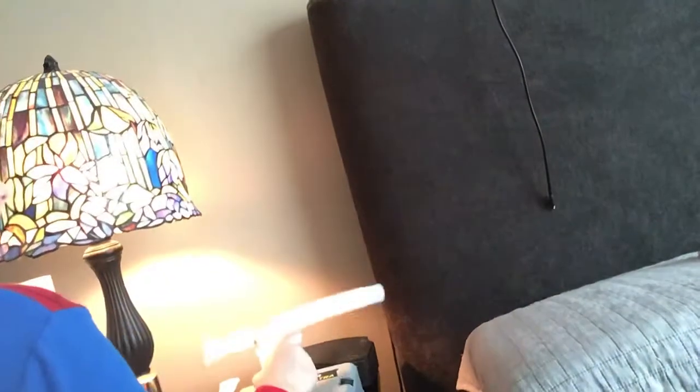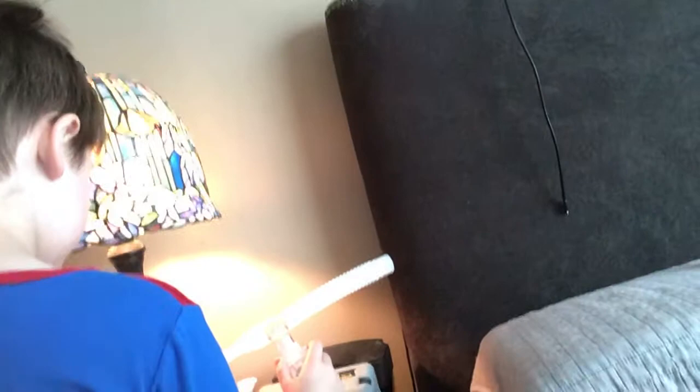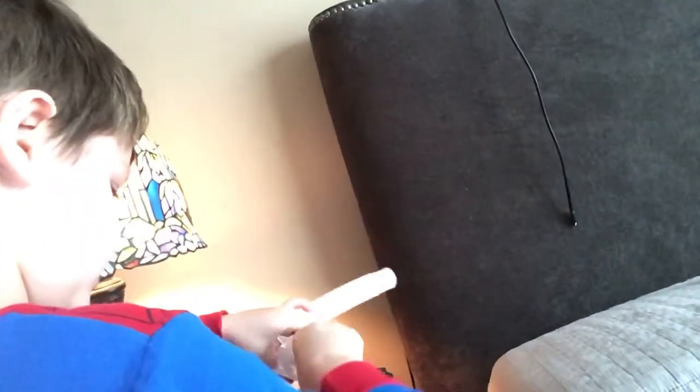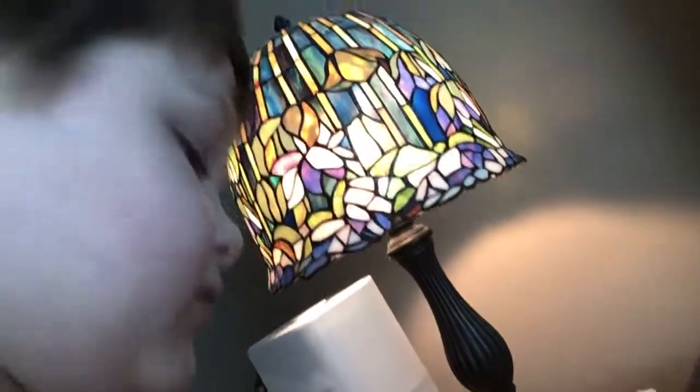Can you help me? You can open it. Put the medicine down and then open that. Just twist it off. No, not that. Here, I'm going to help you. Hold this. No, that's not how it goes. Here, put that back on.